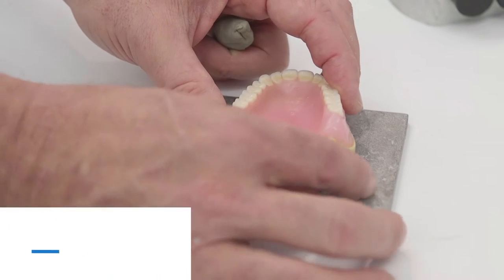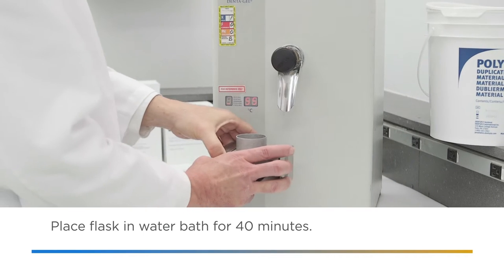Place wax up in flask. Fill flask with hydrocolloid.